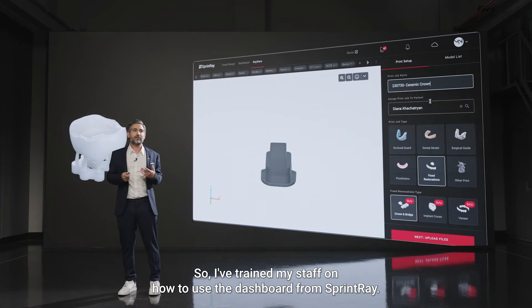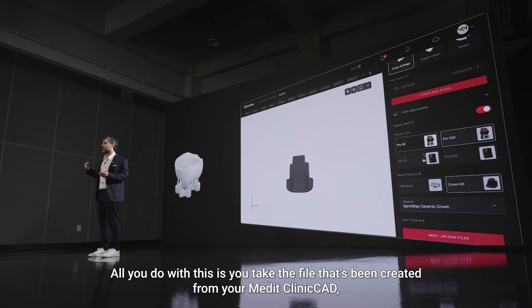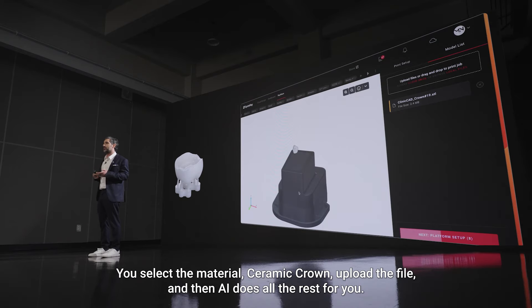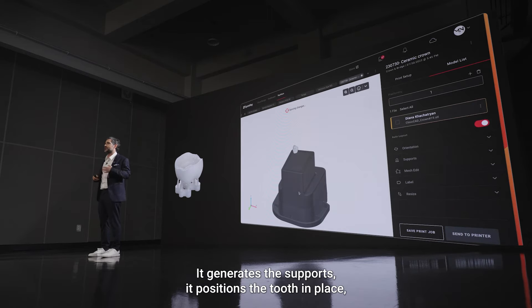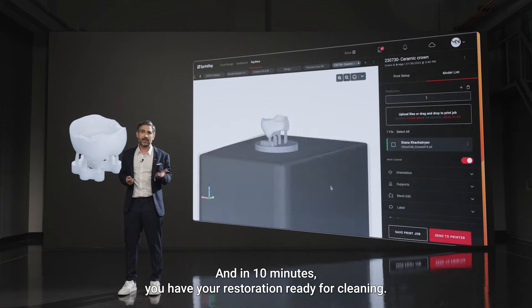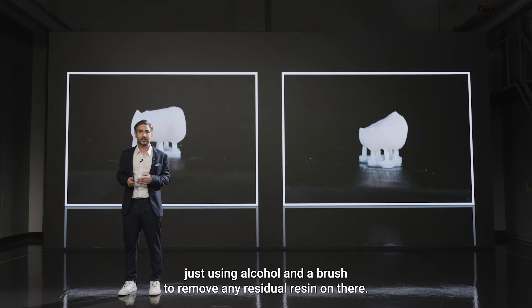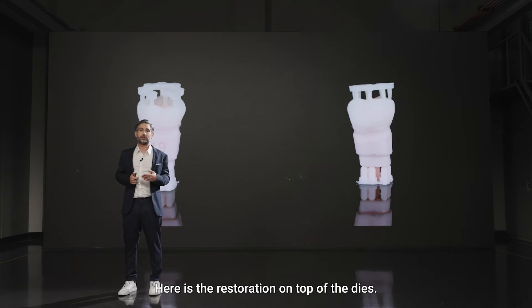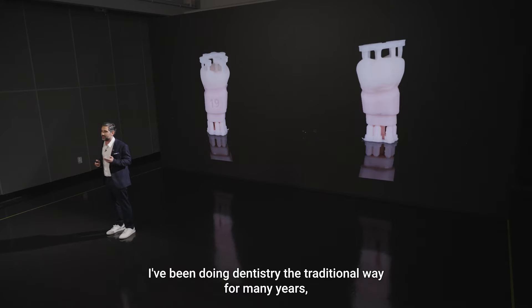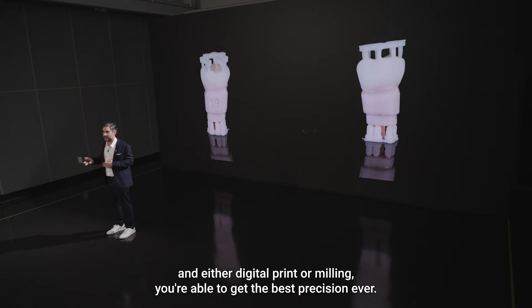Printing is also super easy. I've trained my staff to use the SprintRay dashboard — you take the file created from Medit Clinic CAD, select that you're doing a restoration, select the material Ceramic Crown, upload the file, and AI does the rest: it generates supports, positions the tooth, and you send it to the printer. In ten minutes you have your restoration ready for cleaning. Here after cleaning with alcohol and a brush to remove residual resin, here is the restoration on top of the dies.